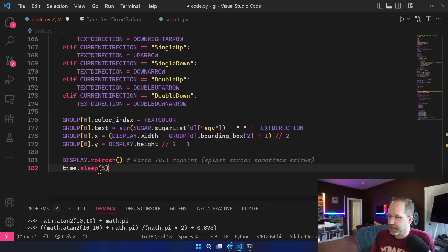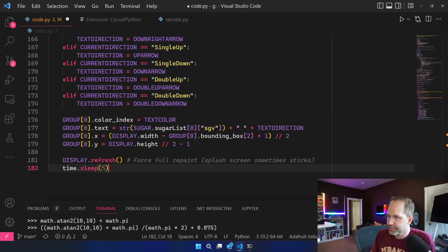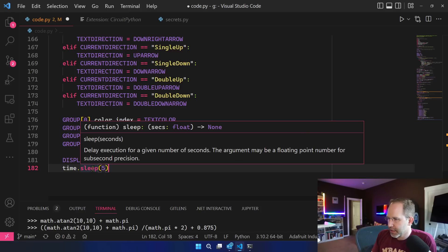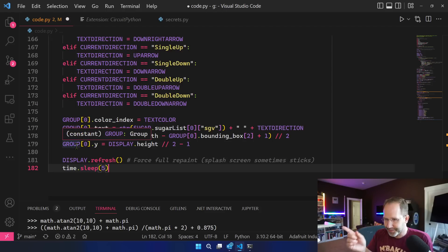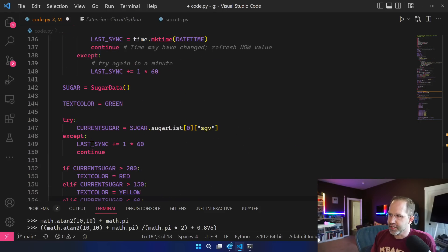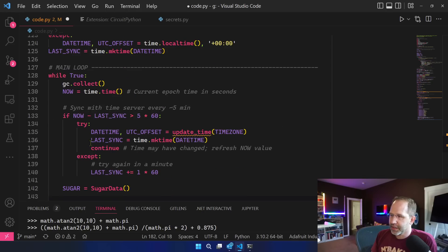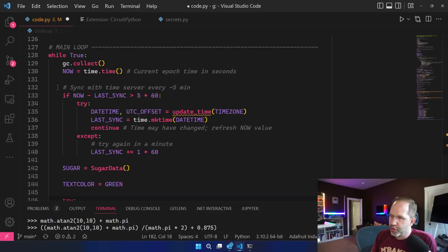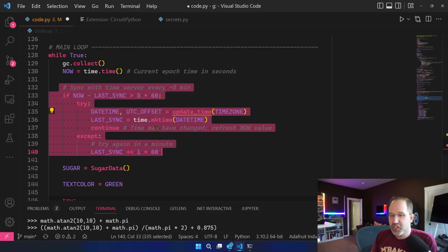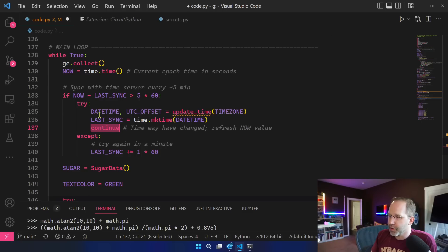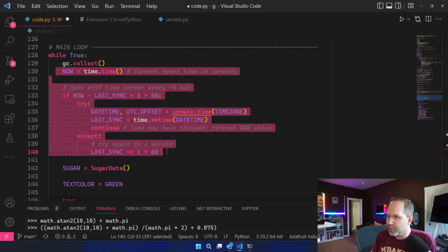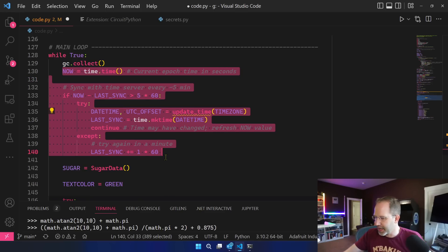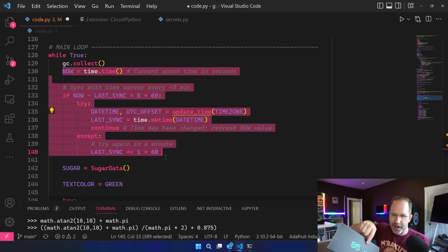Oh okay, this brings up an interesting point. So here I'm sleeping five seconds and I start at the beginning and ultimately I'm spinning around. And I could remove all of this and then sleep down at the bottom. It looks like I'm just checking this and then continuing so I need to think about why am I doing that? I don't really need to do any of this. I guess I was thinking I would have a time down here and I'd be updating the current local time because right now I can't tell when this happened nor do I have a clock.